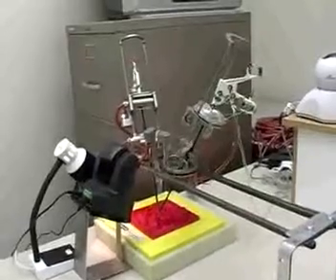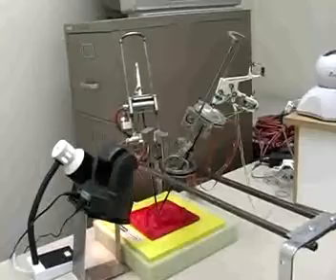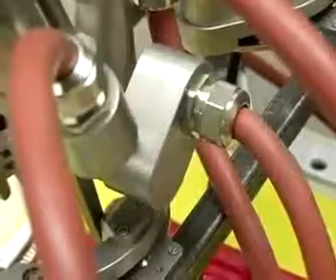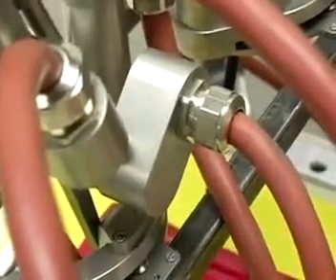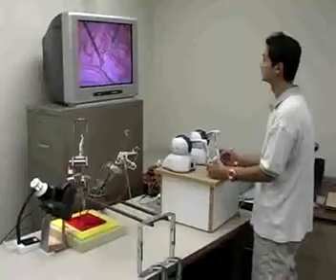Due to the manipulator's small size and weight, they are portable and can be easily set up and fixed in place as needed for particular procedures. The system can be easily integrated into operating rooms as it does not occupy any floor space or restrict access to the patient from any direction.